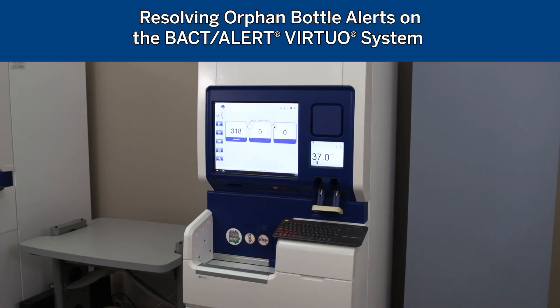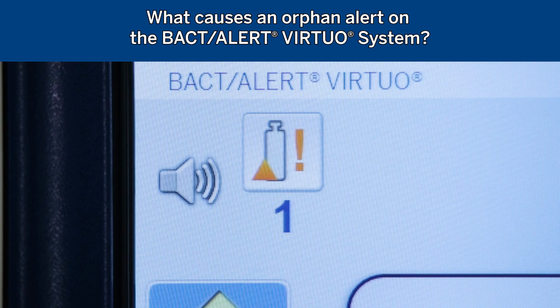The purpose of this video is to demonstrate how to resolve orphan bottle alerts on the BactiAlert Virtuo system. What causes an orphan alert on the BactiAlert Virtuo system?